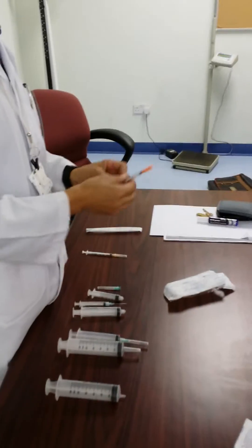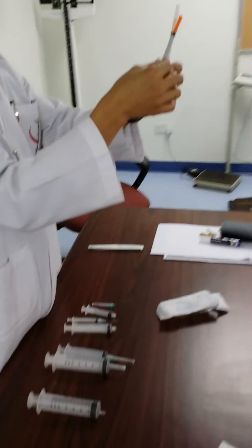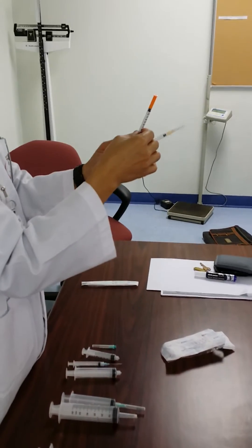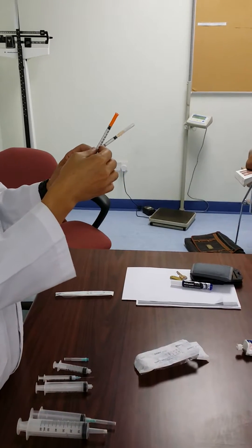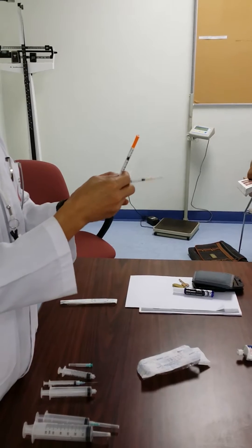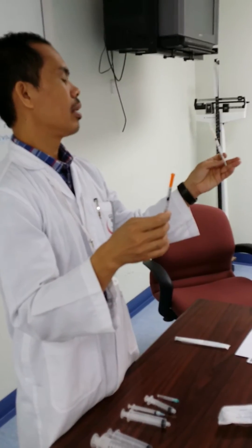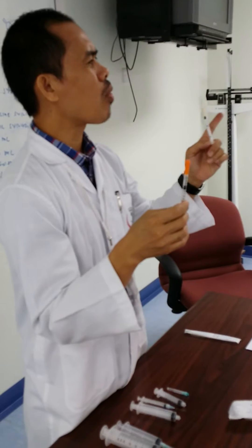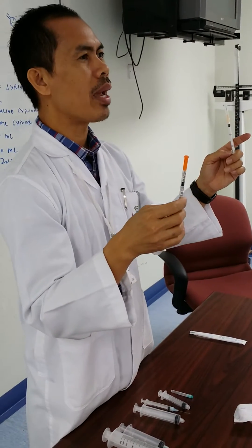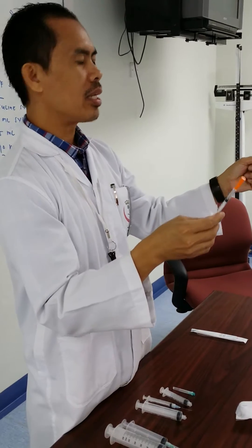Insulin syringes are also 1ml, but it is calculated in units. Units is a smaller dose than ml. 1 unit is only 0.01ml. 1ml is exactly 100 units.